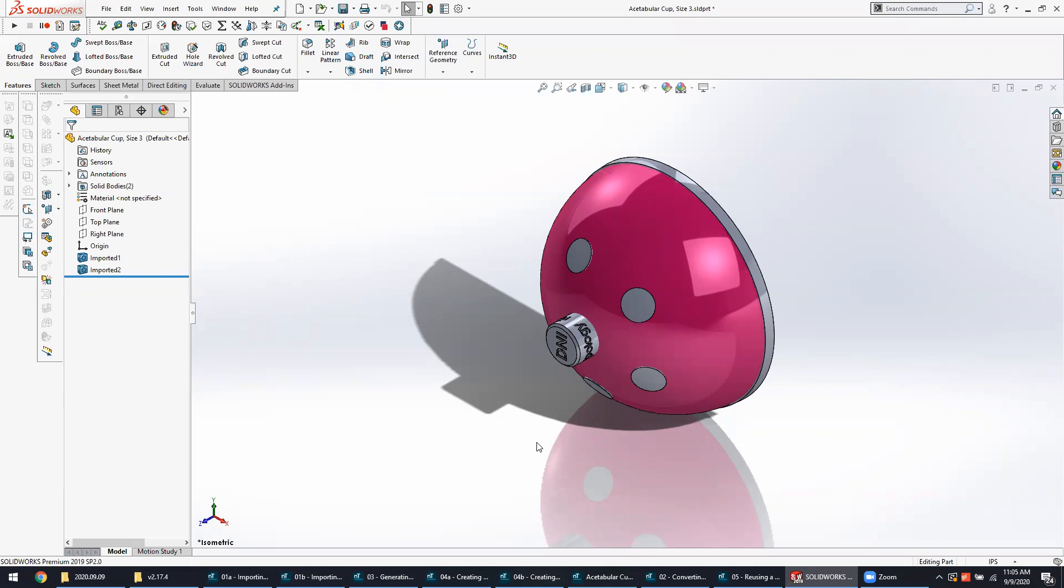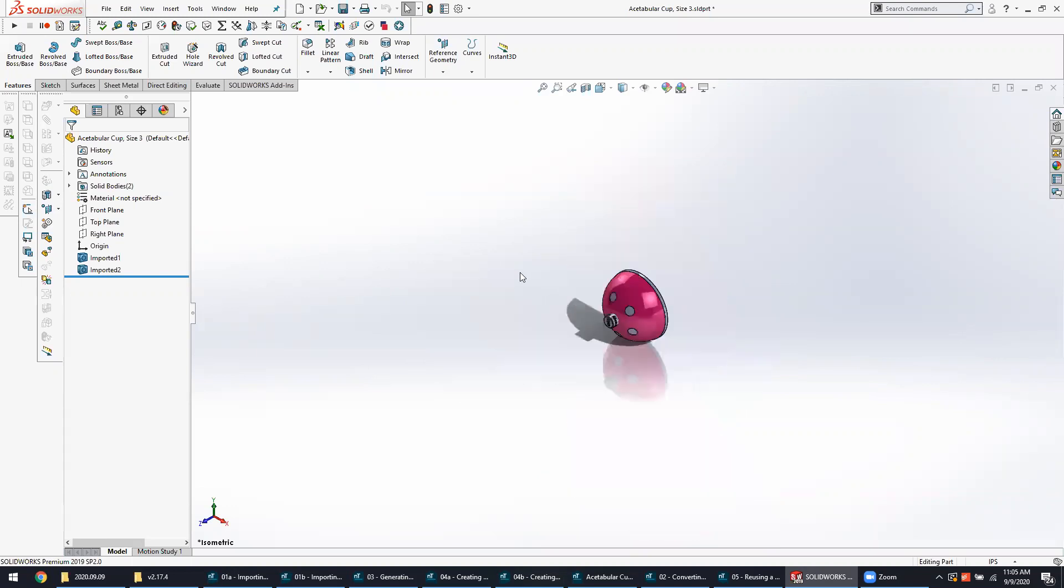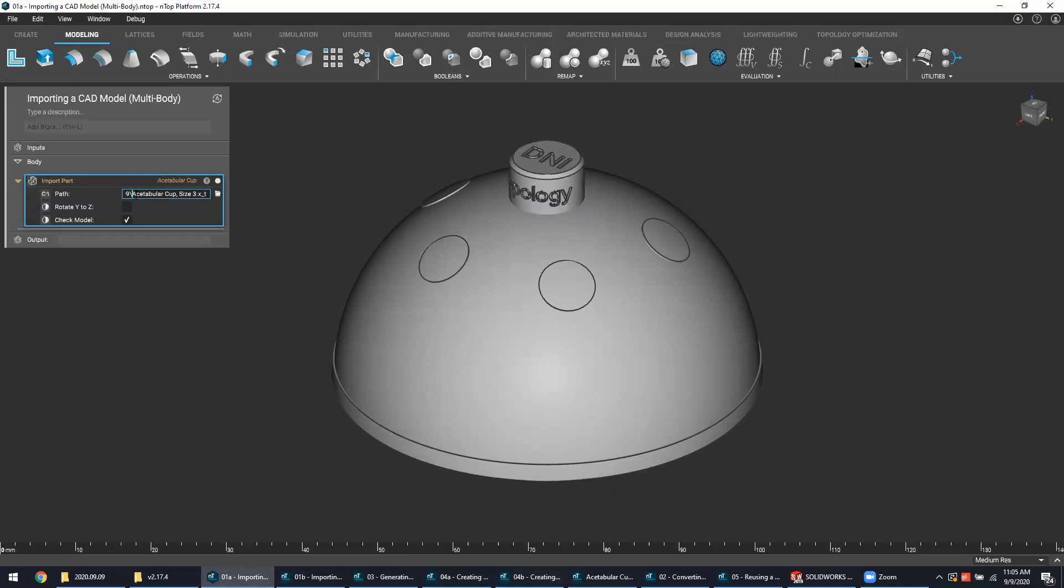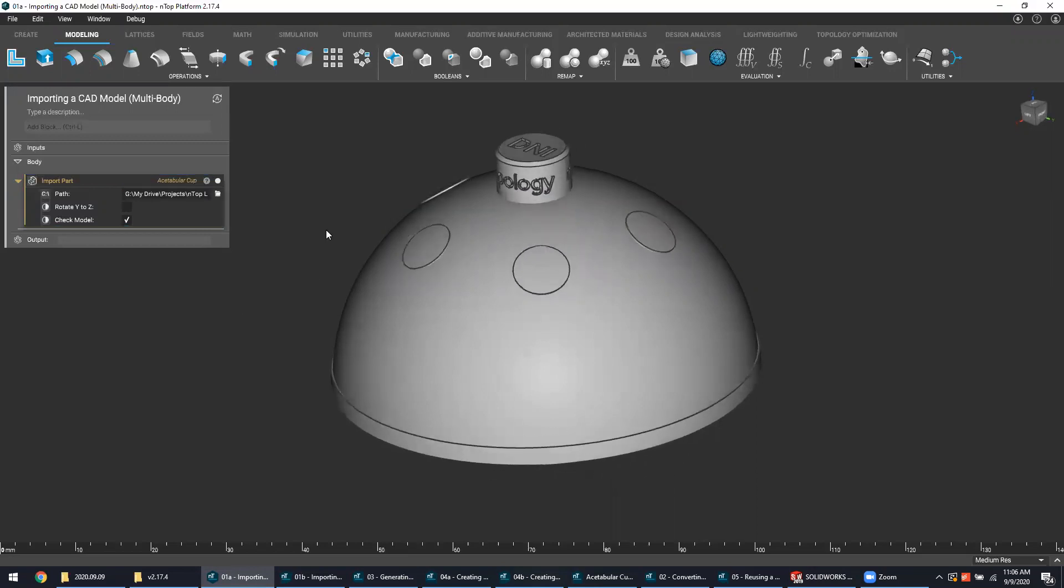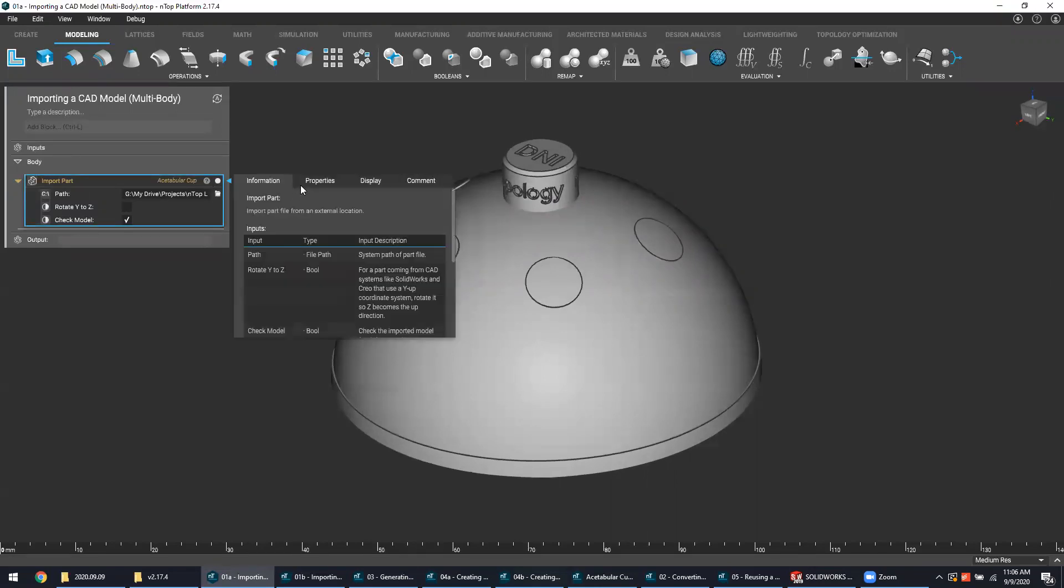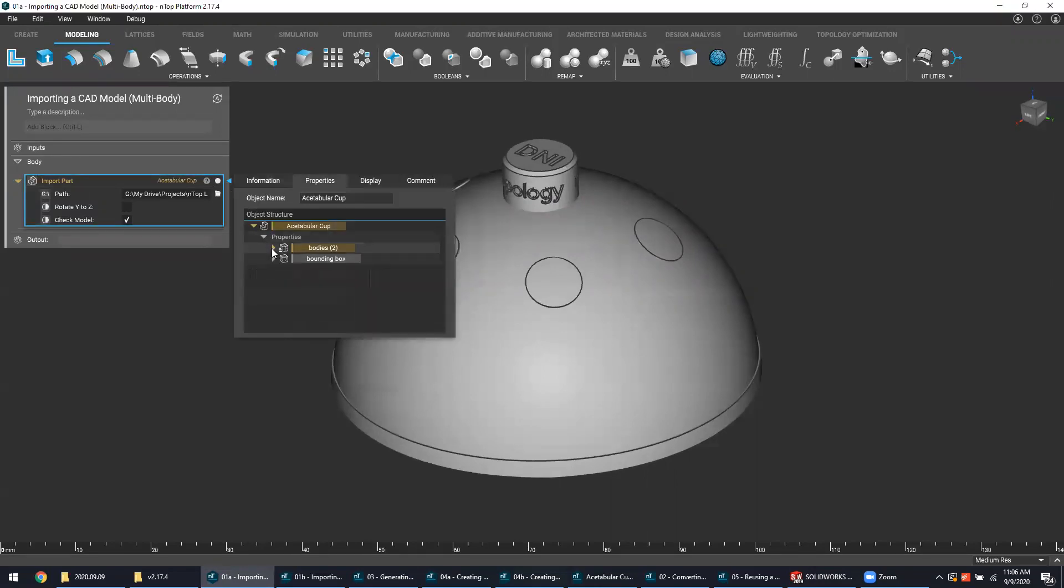The very first step is to import your CAD bodies. Even though we do take in native SolidWorks part files and step files, the most important format to work with is actually the parasolid. Typically, the main form and net shape of your implant design is created in your traditional CAD tool, and each part configuration is normally exported as a separate multi-body parasolid file. You can see that being referred to here in the path pointing to that parasolid. So right here is the acetabular cup, and if we dig into the properties of this imported part, we can see that there are actually two bodies designated as body zero and body one.